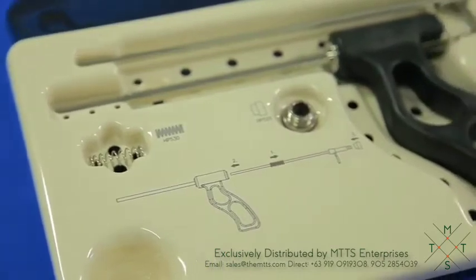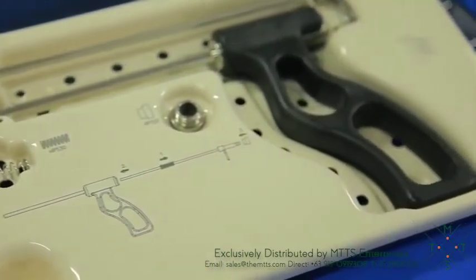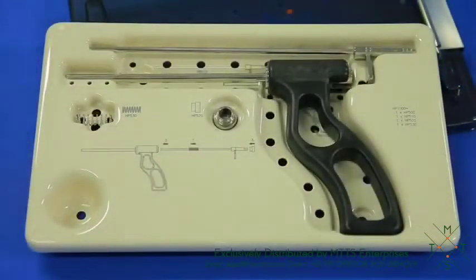The RBI2 handpiece has a sterilization and storage container. Each component has a separate pocket in the container with an individual part number. It also has a diagram for assembly instructions.